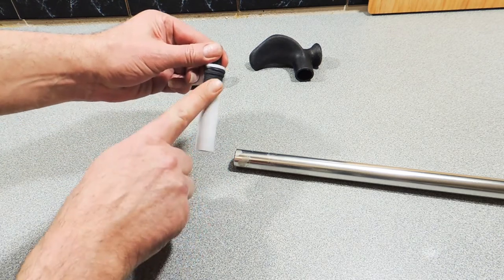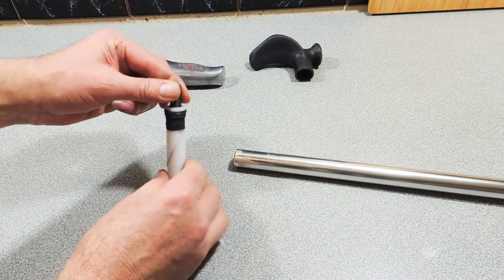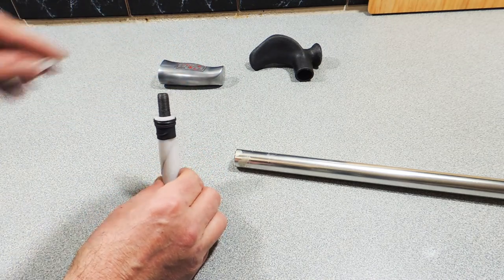Now the way this works is like an old gooseneck on a push bike. So as you tighten it down, one side goes one way, the other side goes the other way, it expands in the tube and forces a seal.